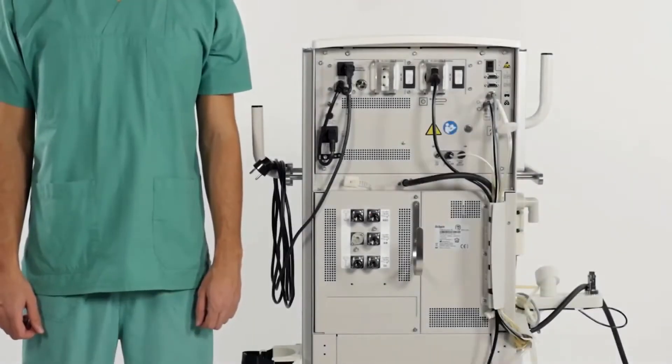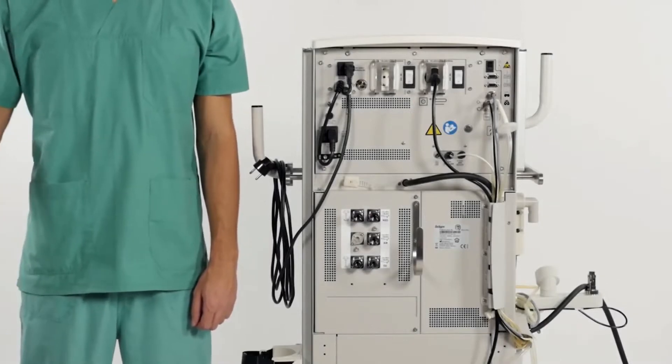In this chapter we would like to show you how to set up the Fabius. First we check the supply connections.